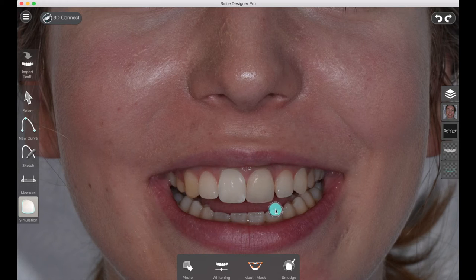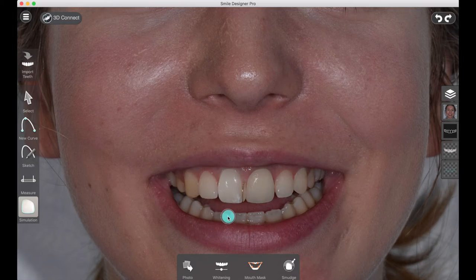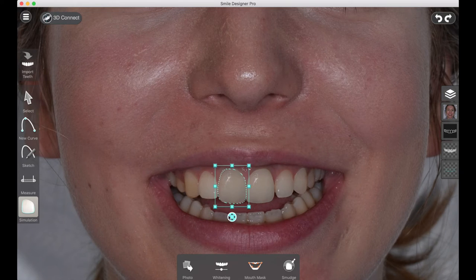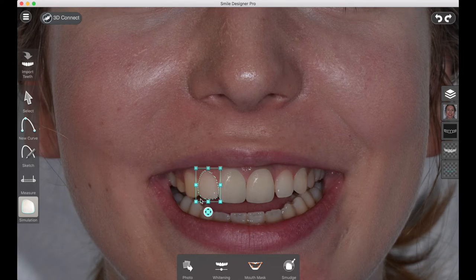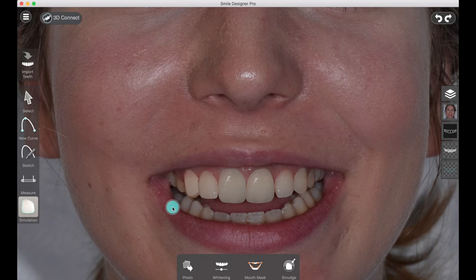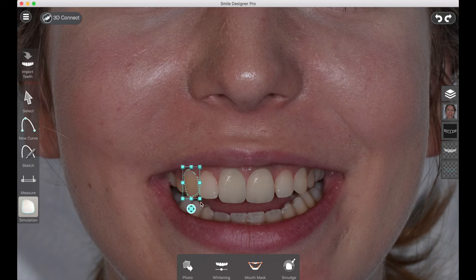Now when we're in the simulation tool and we select the tooth, we can transform the picture that's being cut to the shape that we actually designed. When you select the tooth and move the manipulators around while you're in the simulation tool, you're actually changing the photo under the curve that you designed, and that's cutting it to give the illusion of a tooth being there.